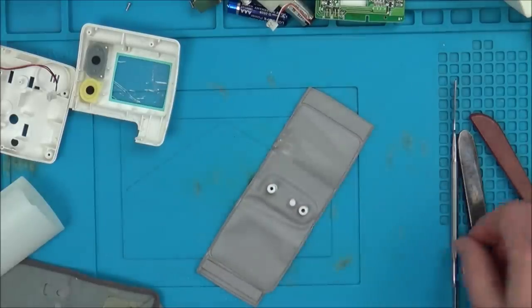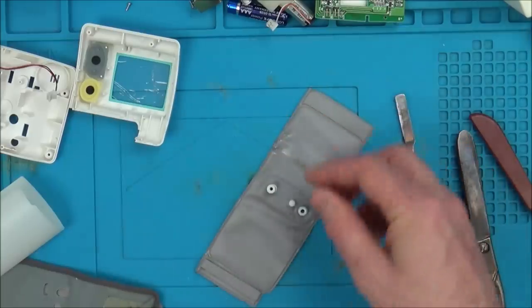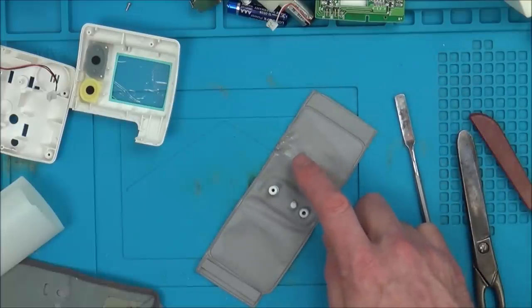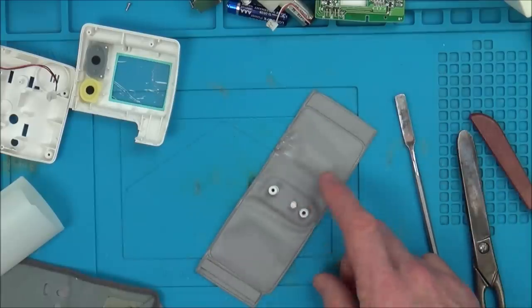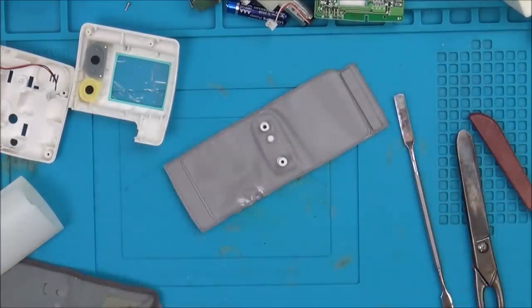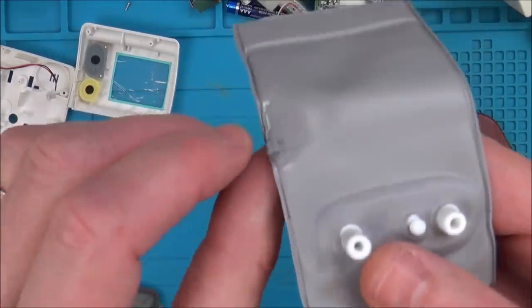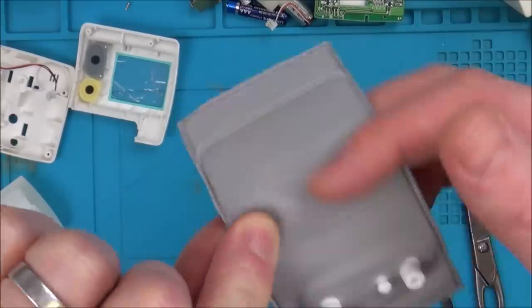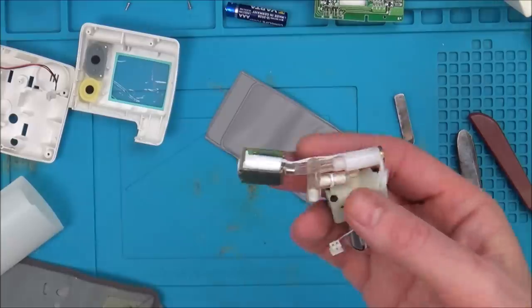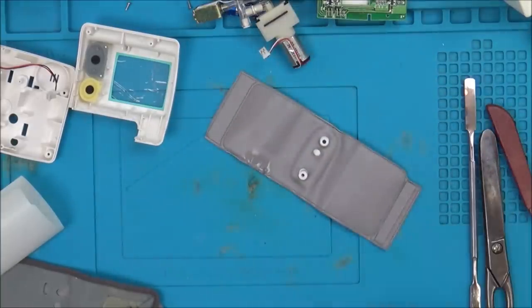Amazingly, that has sealed - but I'm going to let it cool. I might need to do that a few more times, but you can see the plastic's melted into where the hole was. I'm actually surprisingly pleased with how that has gone. I suppose by doing this with heat, it's acted like an iron - maybe the same way they sealed it originally. I don't want to put it all back together for it to fail after five goes. So I'm going to take 10-15 minutes out - I'm just going to keep blowing it up and letting the air out, just to see if it fails. Success! I've been blowing that really hard and it's not leaking because it's sealed. This section is not inflating but it still inflates all around it, so it can't get to where the hole was.